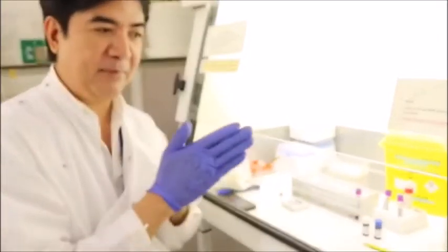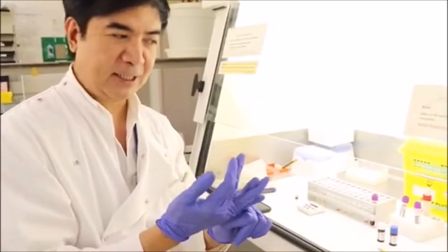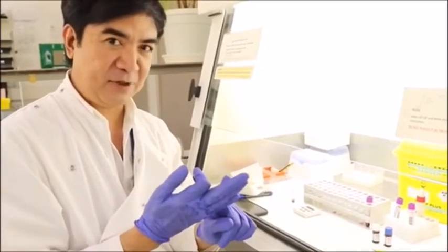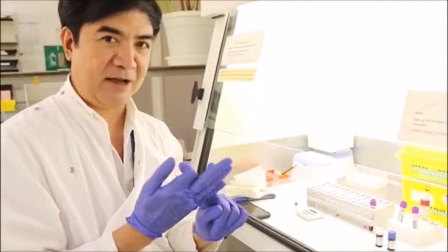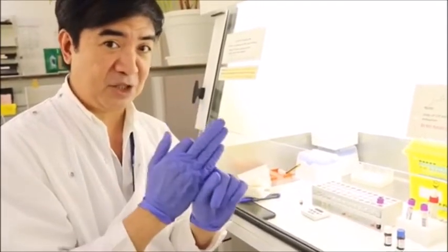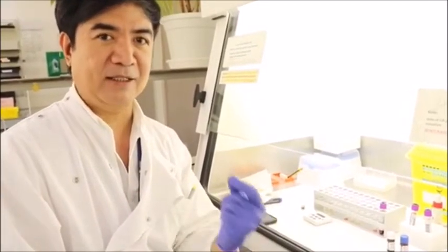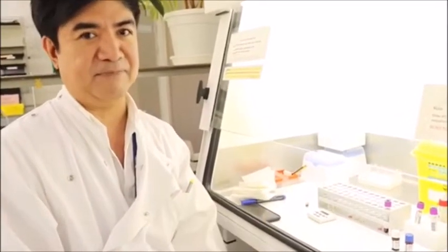Why? Mainly because young red cells, white blood cells, and recently transfused blood normally have G6PD enzymes. So if your sample has those conditions, you will end up having a false normal G6PD enzyme activity. So that's it.